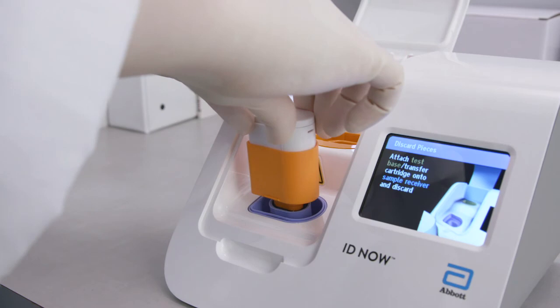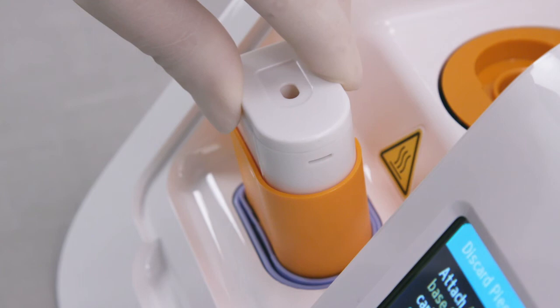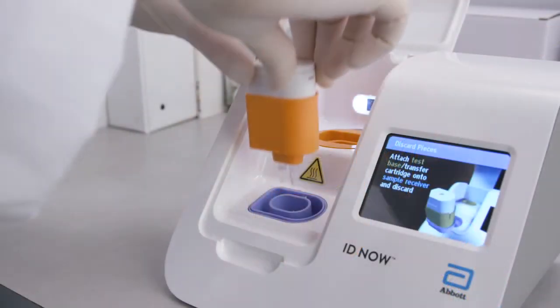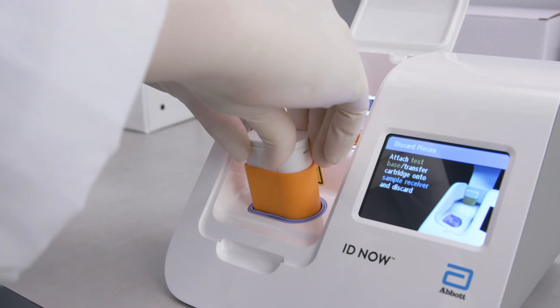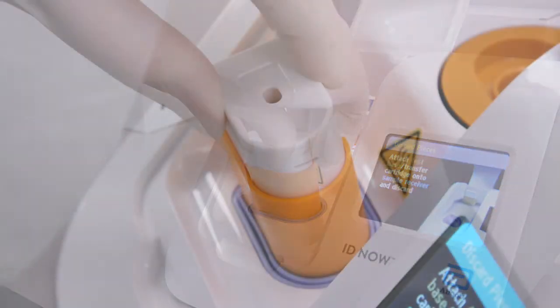Notice the notches at the bottom of the orange test base. With a gentle rocking motion forward and back, these notches will properly seat into the small elongated openings on both sides of the blue sample receiver. This rocking action will connect all test pieces for proper disposal. Do not try to remove the sample receiver by any other method, as there is a risk of spilling the patient sample and contaminating your workspace.